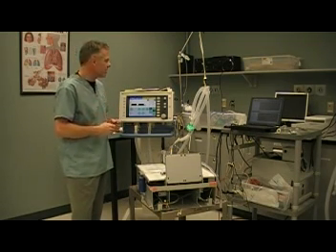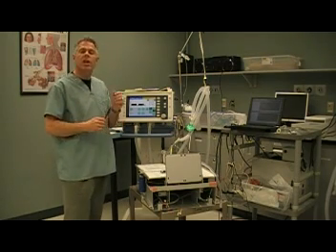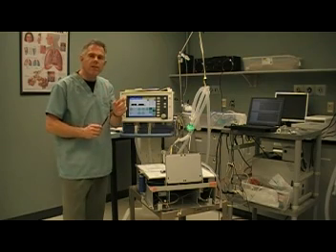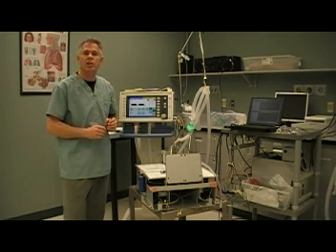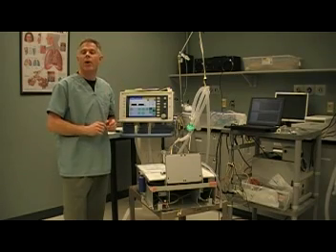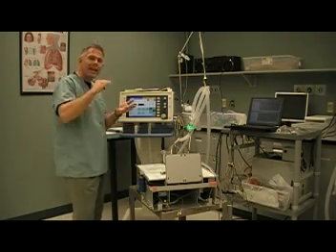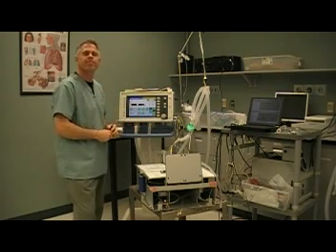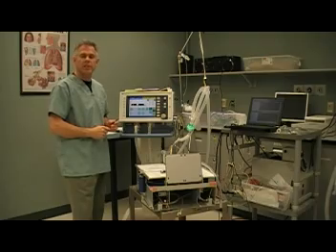That's an important distinction to make. Airway pressure release ventilation is usually utilized for patients with severe lung disease with severe oxygenation problems. We use it to manipulate mean airway pressure, and we have absolute control over the inspiratory pressures and the expiratory pressures. That's the mode of airway pressure release ventilation.